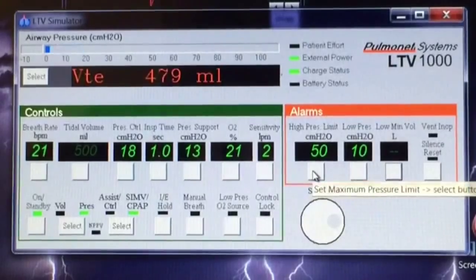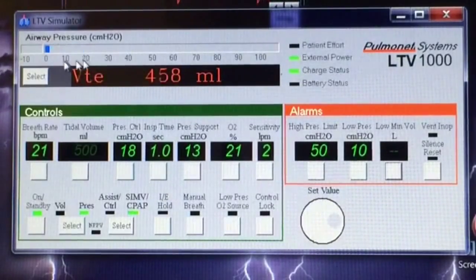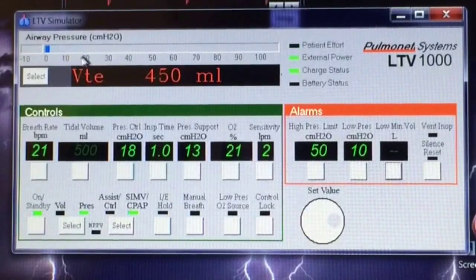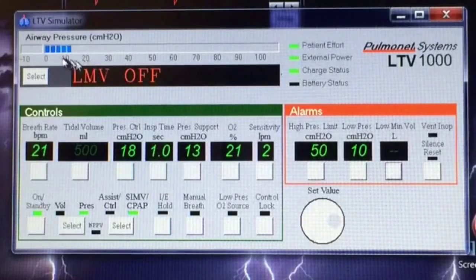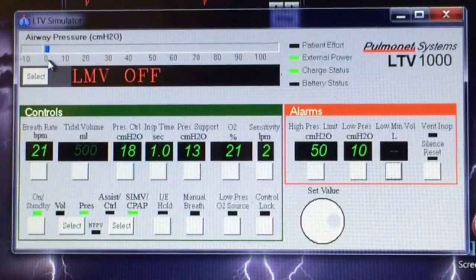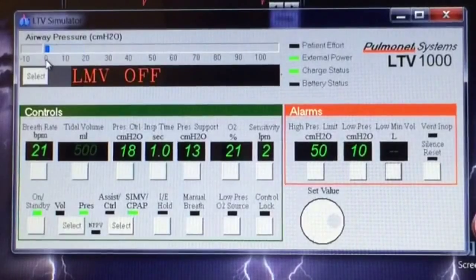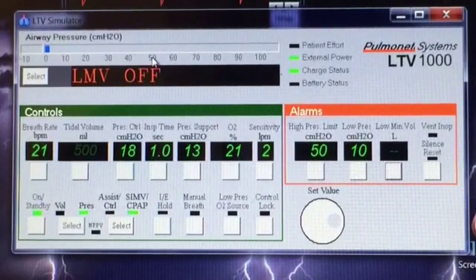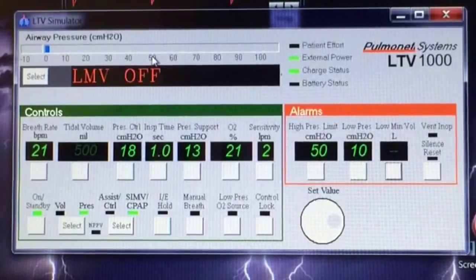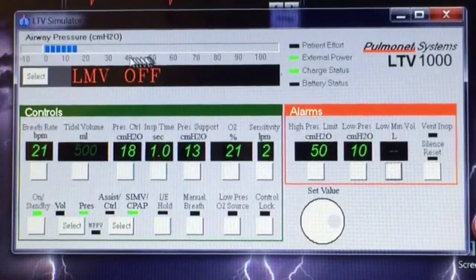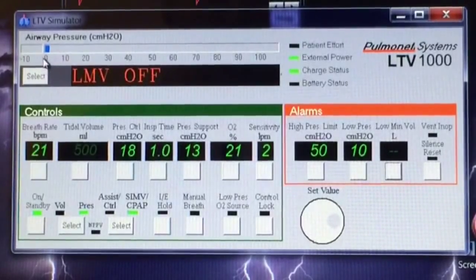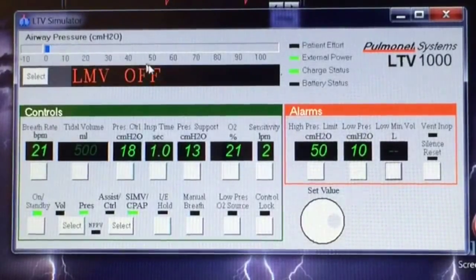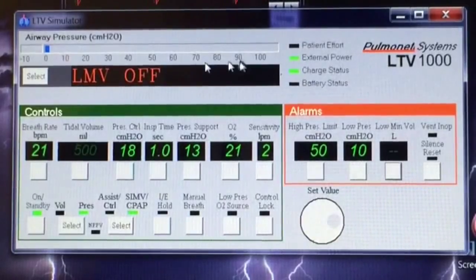The high pressure limit — we can see this up here on the pressure bar. When it gives a breath, it applies some pressure to the patient's lungs. If they get congested or if they cough, that pressure can rise higher and higher. But we don't want it to get too high. In this case it's set at 50. So if this pressure goes above 50, the ventilator is going to say that pressure is too high, I'm going to let them exhale and the breath will stop right then. It'll go ahead and try again with the next breath, because maybe they only coughed on one breath or they cleared out the congestion. That's to keep the pressure from going too high and causing any barotrauma or pressure damage to their lungs.